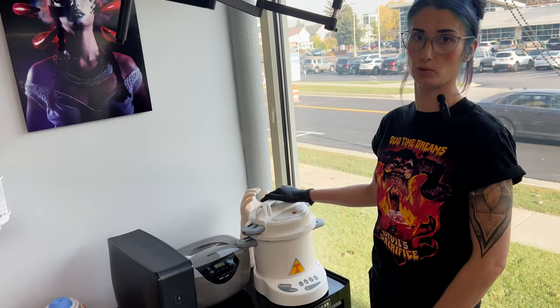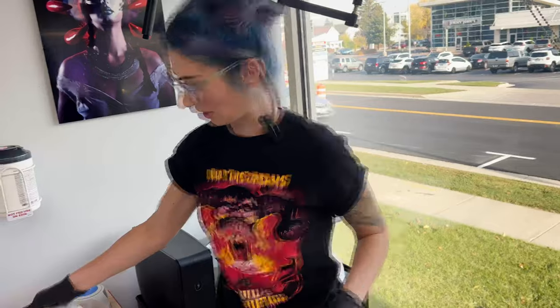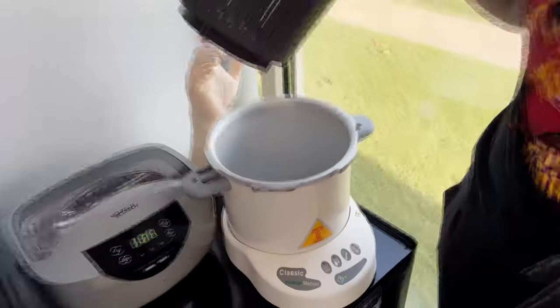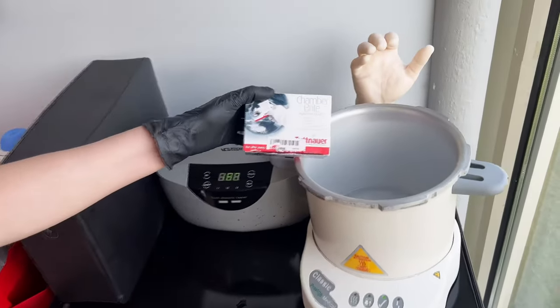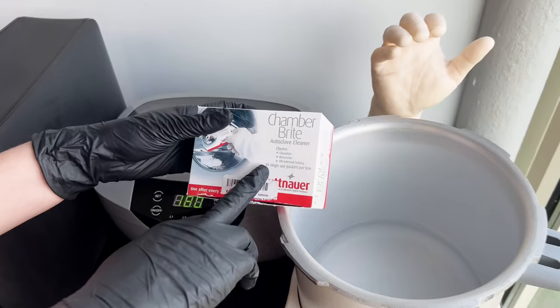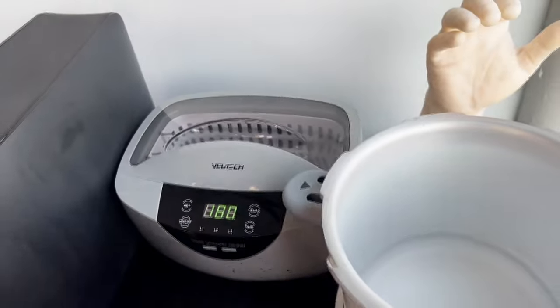To maintain this autoclave you're going to want to clean it at least once a month or more. I'm going to do it right now after this cycle to show you how. First, open it up and make sure there's enough water left — some has gone out but not much. We're going to top it up to the fill line and then use Chamber Bright for our maintenance. Chamber Bright keeps the chamber, reservoir, and all internal tubing clean, and it actually runs through the machine.